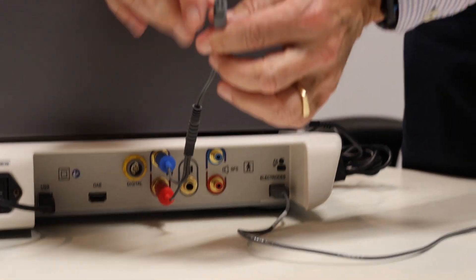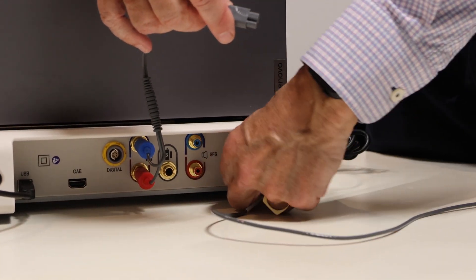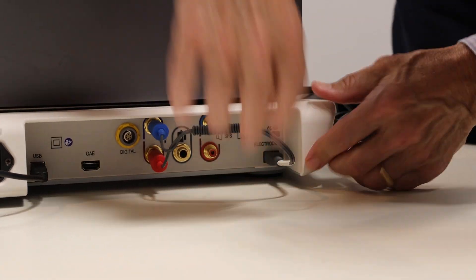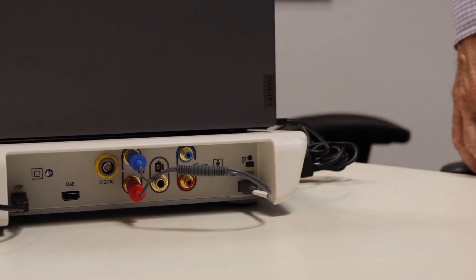And then the other end plugs into the input for the electrode cable. So you're going to unplug that, and that plugs in there. And that's the setup for doing the loopback test on the Audera Pro.